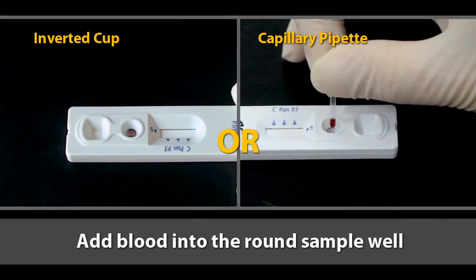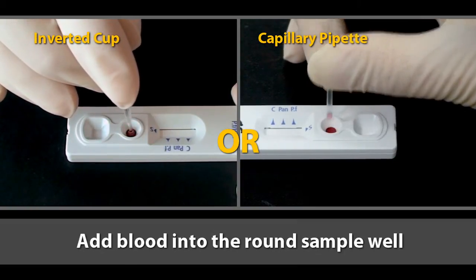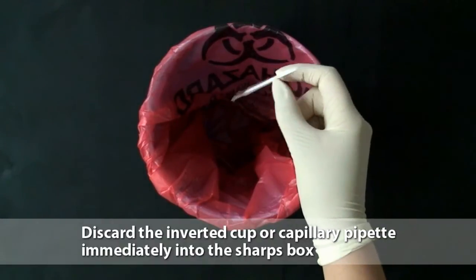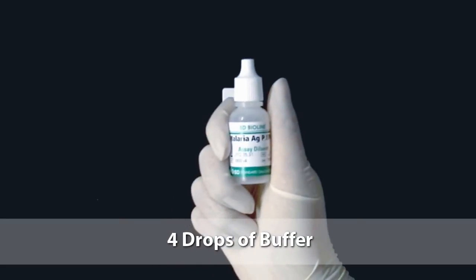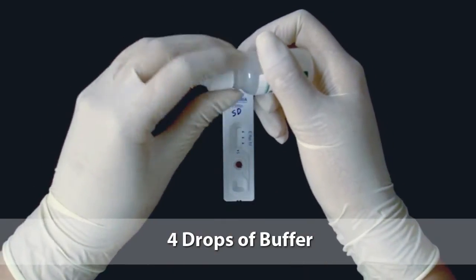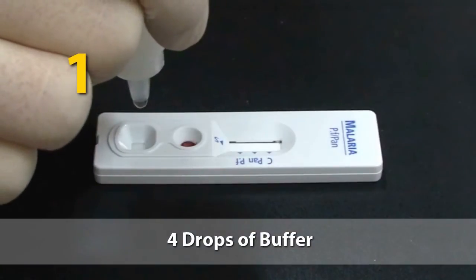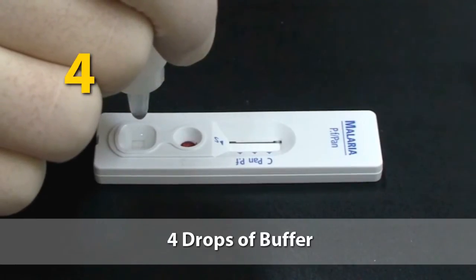Add 5 microliters of the collected blood into the round sample well, touching the sample pad. Discard the inverted cup or capillary pipette immediately in the sharps box. Add 4 drops of buffer into the square buffer well. One, 2, 3, 4.